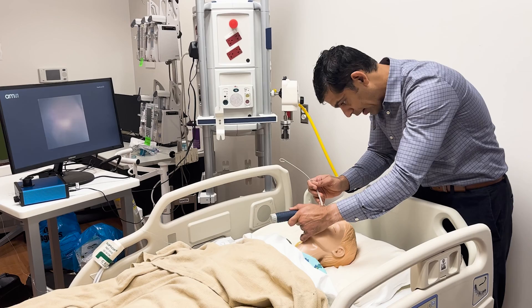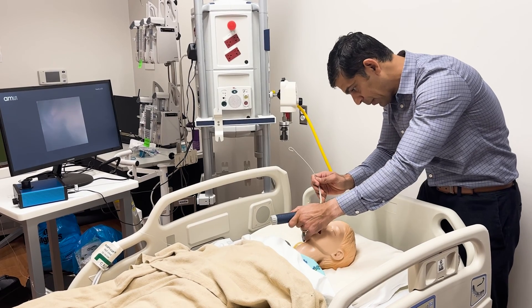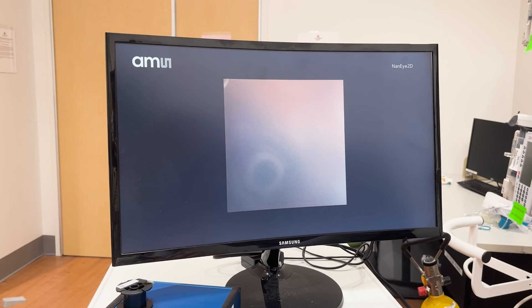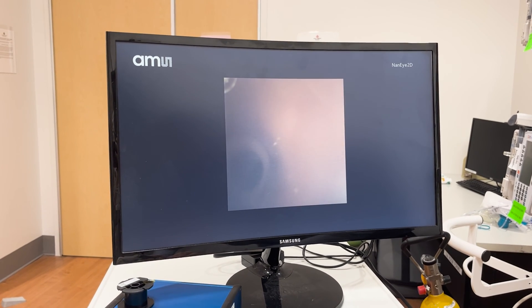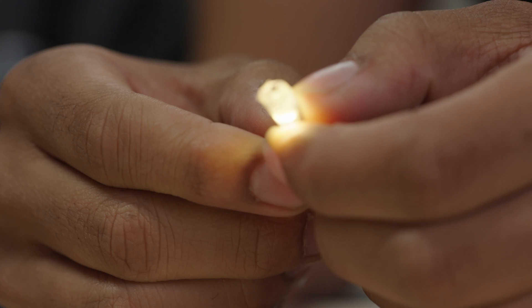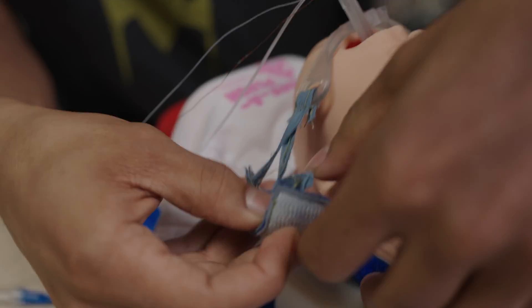We just went to Texas Children's Hospital and had Dr. Jane test it. The points he was most impressed by were the fact that this camera is so small — one millimeter by one millimeter by one millimeter in cross-section, which is about as small as you can get — and the fact that this light is not getting too hot in the body, which was also a concern, and that this tube is durable and flexible.